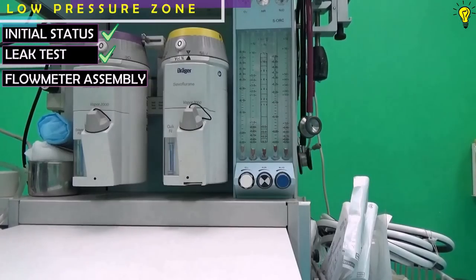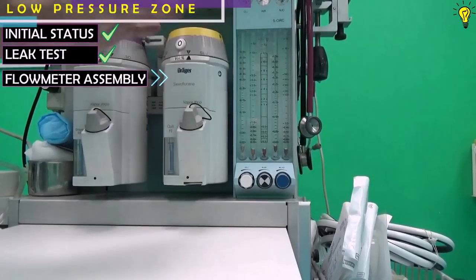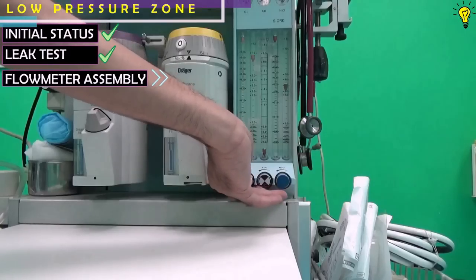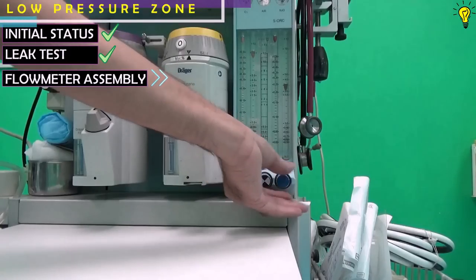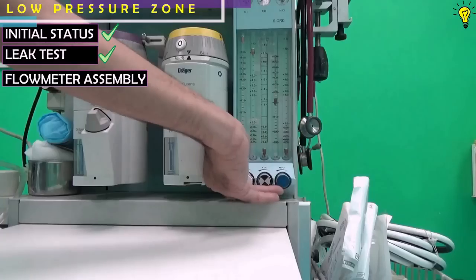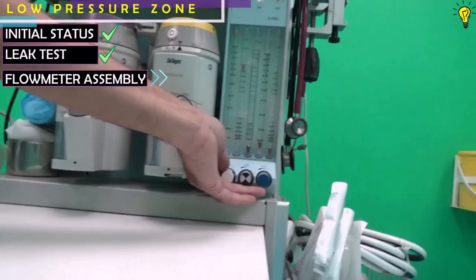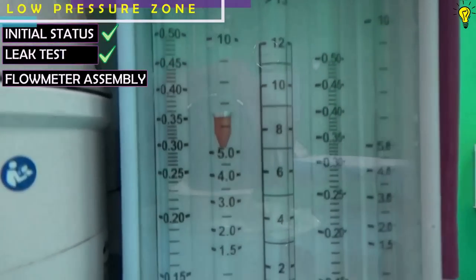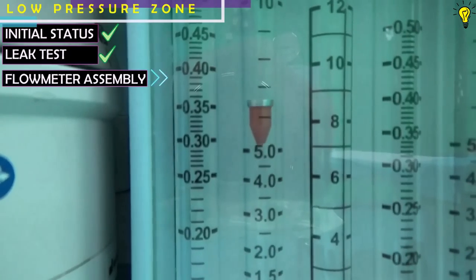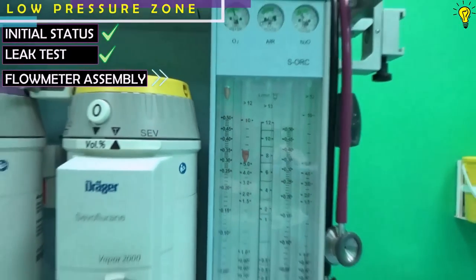Once you have performed the leak test, turn on the machine and check the gas flows through the whole spectrum of flow meters for different gases, especially oxygen. Also check the working of the rotameter and make sure the bobbin is rotating properly and not sticking at the top of the tube.